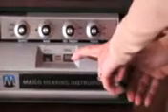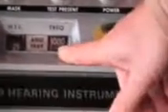The other thing I want you to know on the audiometer is the frequency selector dial, and on this audiometer it's on this side. You can see it's changing my frequency from 250 Hz up to 8,000 Hz. When we test, we start at 1,000 Hz. I have it set at 1,000 Hz and 25 dB HL.